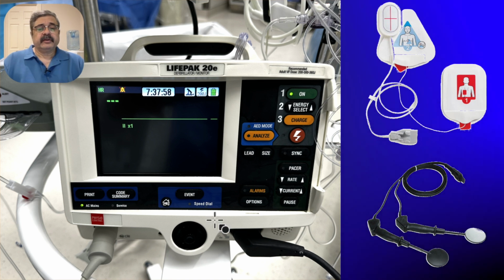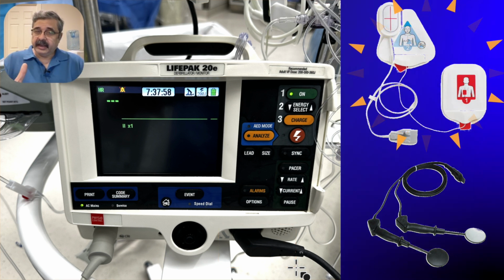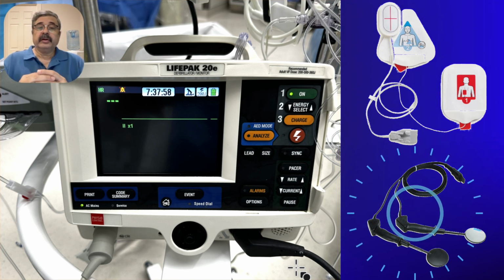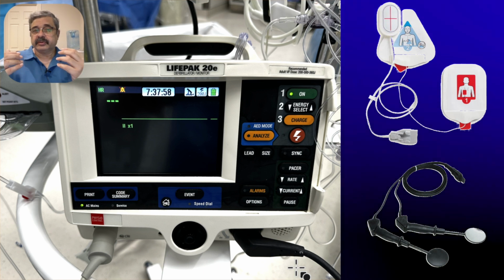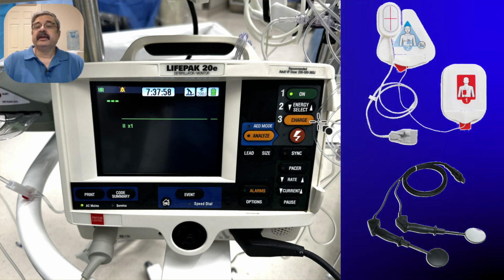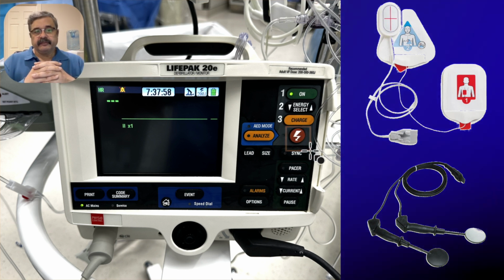Now the important aspect over here is to concentrate on this specific location. This is where either the transcutaneous pads are attached when we are only using this in the transcutaneous mode to cardiovert or defibrillate, or the internal cardioversion paddles will be used that are employed when the chest is open, and the cardiac surgeons will be choosing to cardiovert or defibrillate. In that case we will go only as charging, selecting the energy, charging, and this specific function will be delegated to the person holding the internal cardioversion paddles, and they can directly do it on the field.